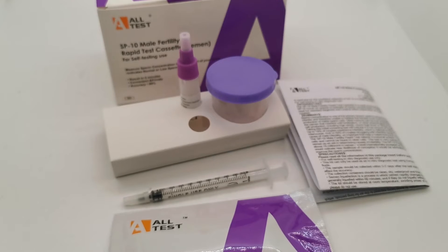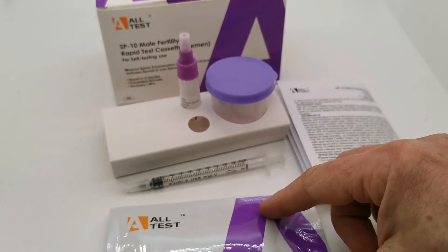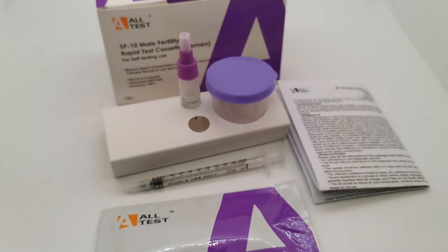The other important advice to be aware of when considering doing a male fertility test: for optimal results, the sample should be collected after a period of a minimum of three, and ideally seven, days from the previous ejaculation. In healthy sperm samples that's probably not going to be an issue, but if an abnormal or low result is obtained, then that advice should be followed to get a more accurate example of the baseline sperm concentrations.